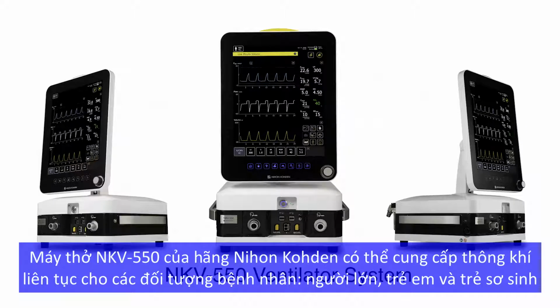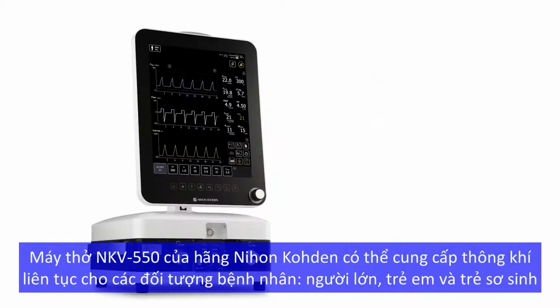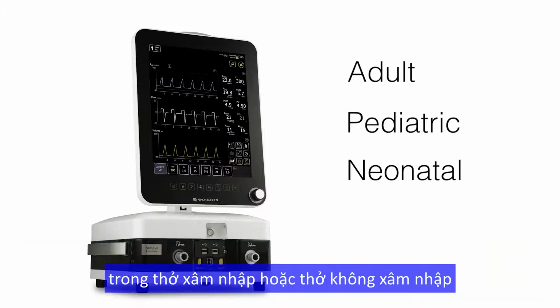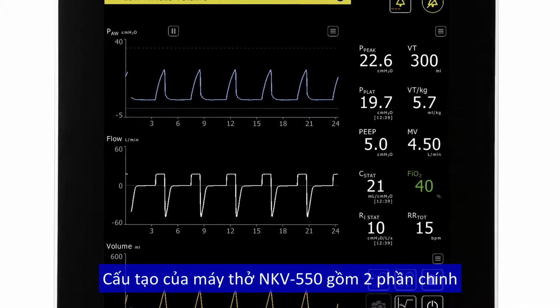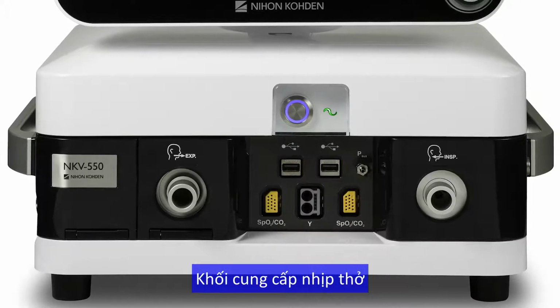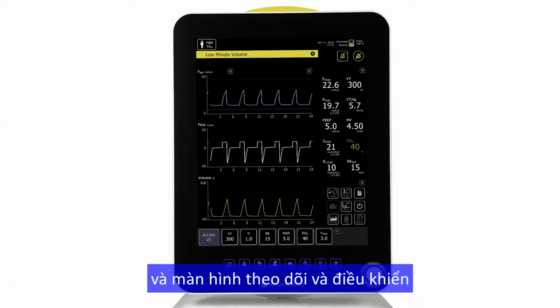The Nihon Kohden NKV-550 ventilator system is intended to provide continuous ventilation for adult, pediatric, and neonatal patients who require invasive or non-invasive respiratory support.